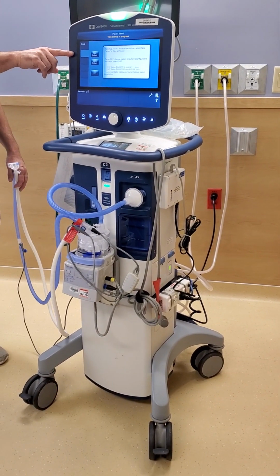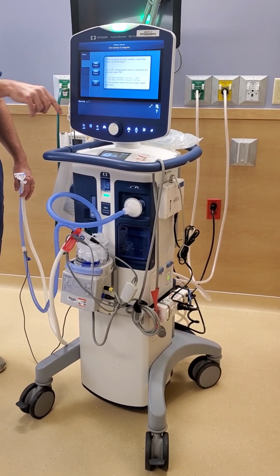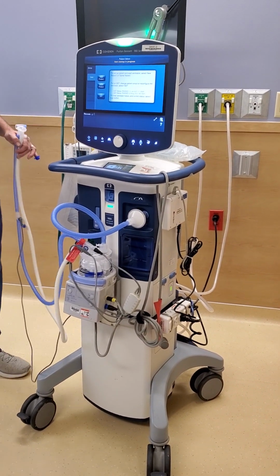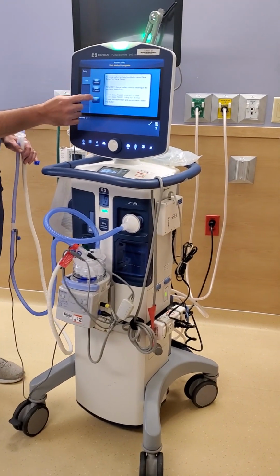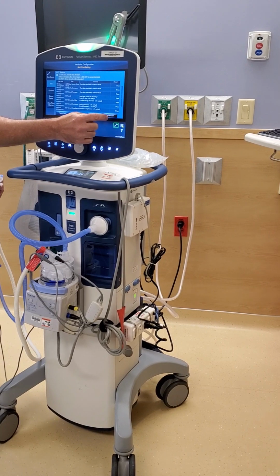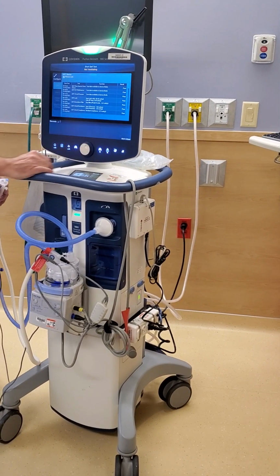Do we have to wait till the word "vent" pops up in that tab before the buttons are ready? Maybe they'll do that. Okay. All right, so now we're ready to go. So we're going to run the SST. So I'm going to select SST, and then run all, and accept.